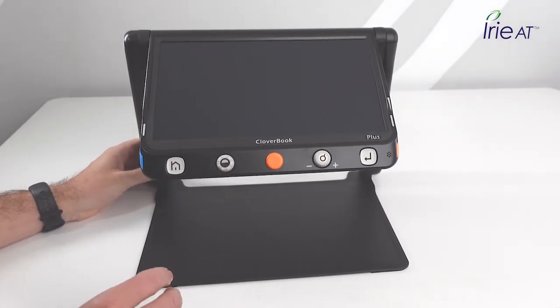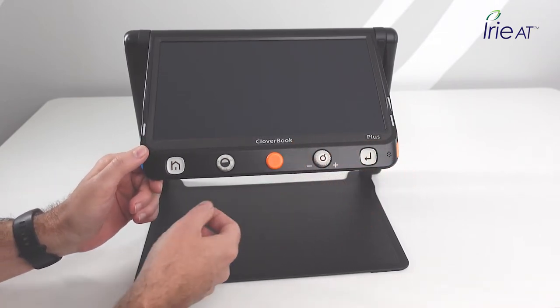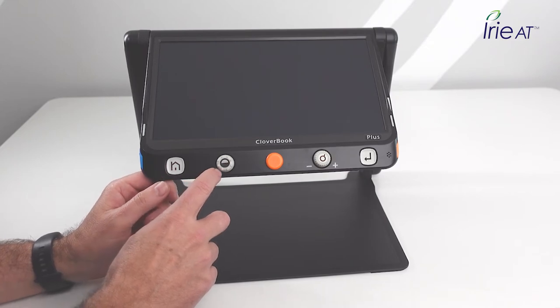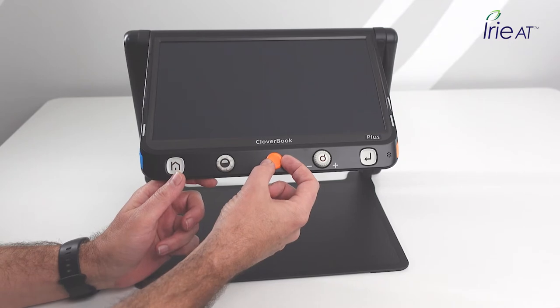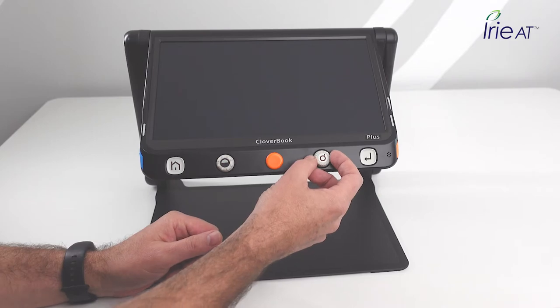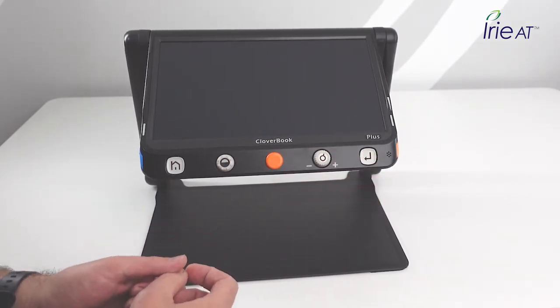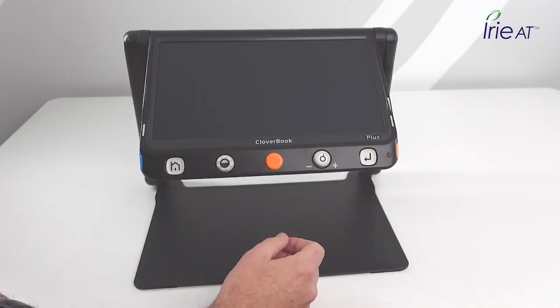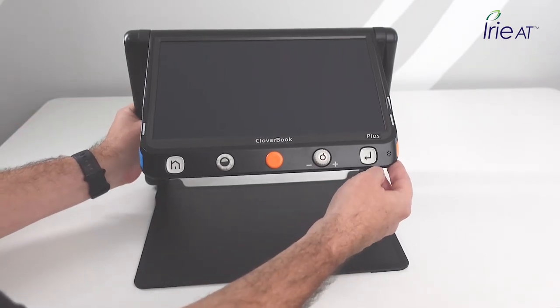On the front control panel, starting from the left: there's the home button, then the contrast knob and button, then the panning joystick in the center, then the zoom wheel to the right of that. The enter button is the final button on the front control panel. There's also a microphone used for voice labeling when you're saving files and want to find them by voice.